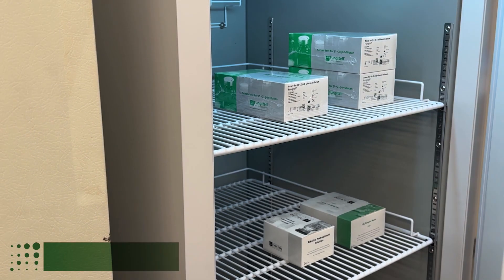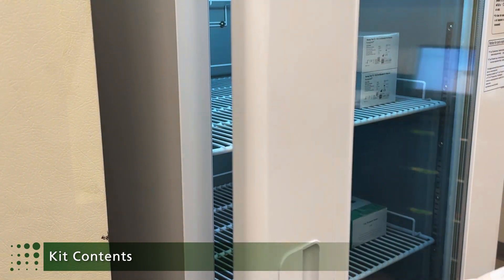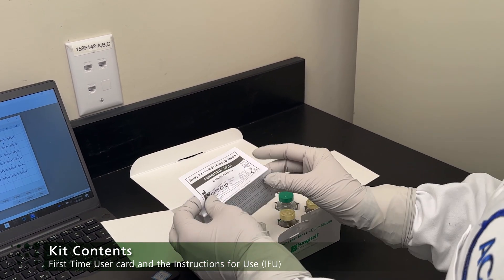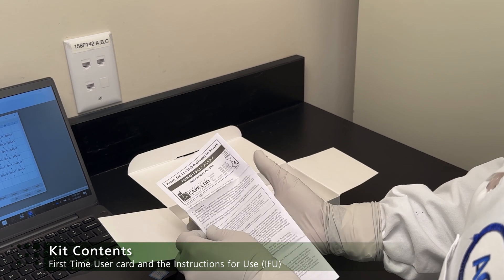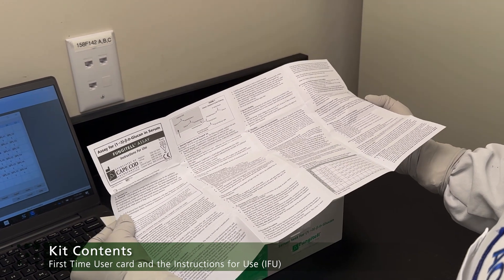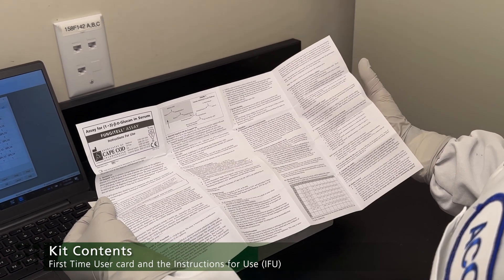The Fungitel kit should be removed from the refrigerator approximately 30 minutes before use to allow all components to reach room temperature. The Fungitel kit includes the instructions for use, or IFU, printed in English. Translations of the IFU are available in 19 languages on our website, fungitel.com. The instructions for use should be read carefully before performing the Fungitel assay, as they contain regulatory, scientific, and validation information, references, and suggestions for appropriate sample collection and storage.